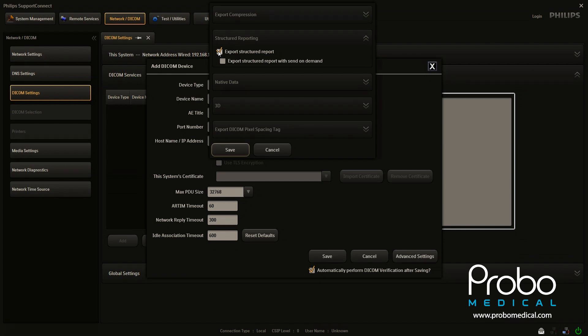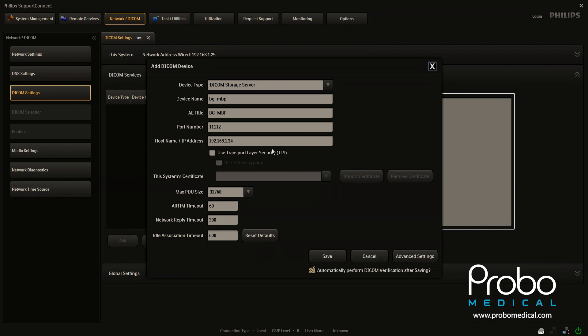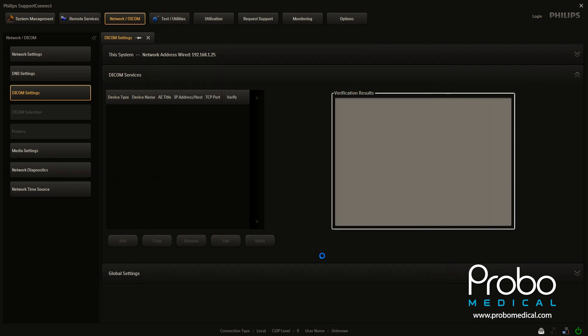If you have structured reporting, I'm going to unselect it because I'm not sure the device we're sending this to right now has that. And I don't want to create any issues during the video. All right. So with that, we are going to save.